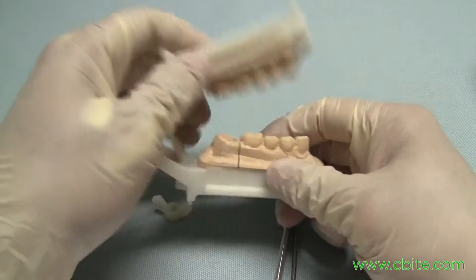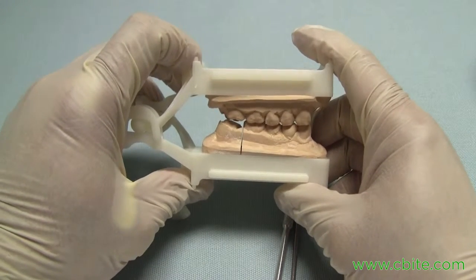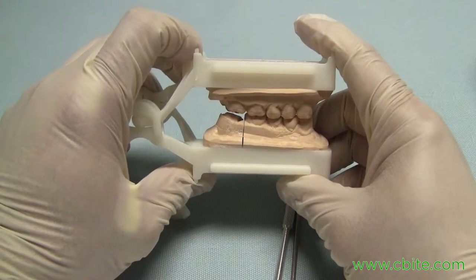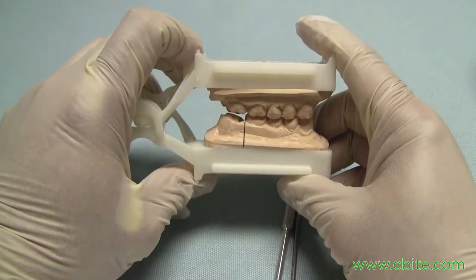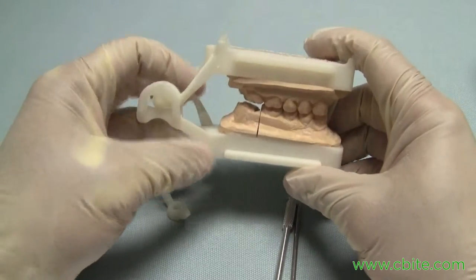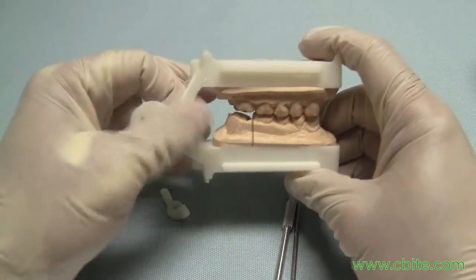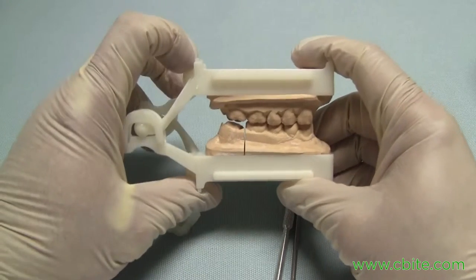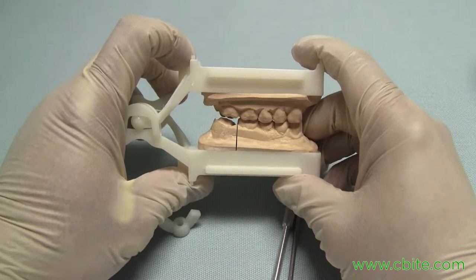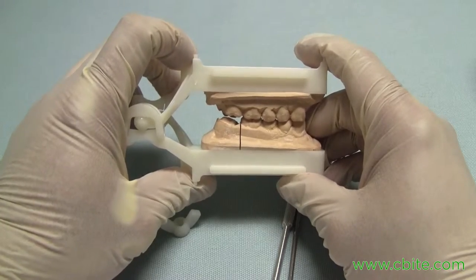Here's an example of a free end unit. Without the backstop pin, you'll have that slight bounce in the back. That can't be helped unless you have a metal articulator — any plastic disposable articulator will be prone to having that.